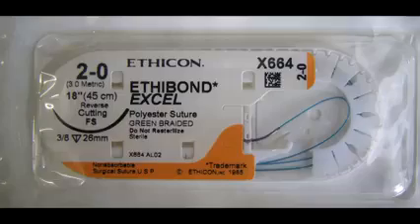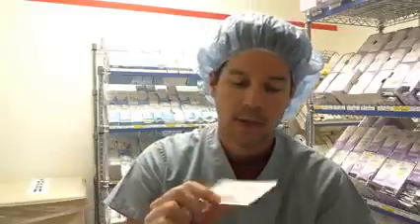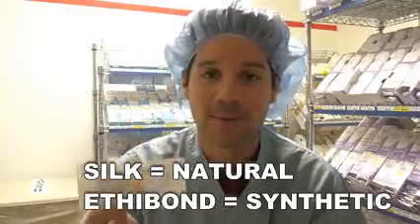The second suture I want to talk to you guys about, again multifilament, is the Ethibond. The Ethibond has the orange packaging, but the suture itself is green. Now, I see this as basically a green silk. It's very, very similar to a silk, except that it's green. Ethibond and silk are both non-absorbable sutures, and they're used in many of the same ways.